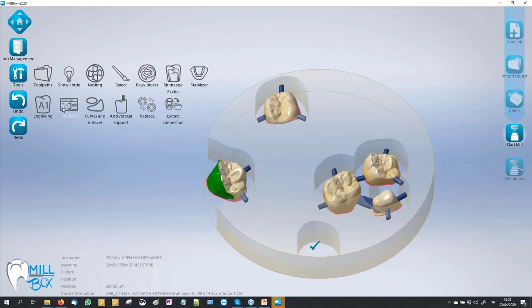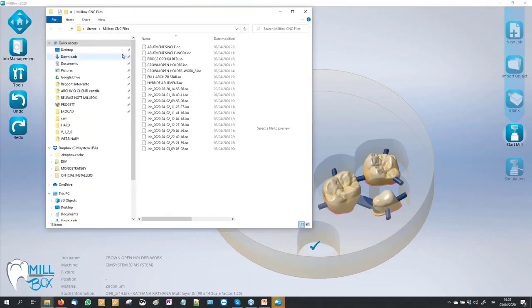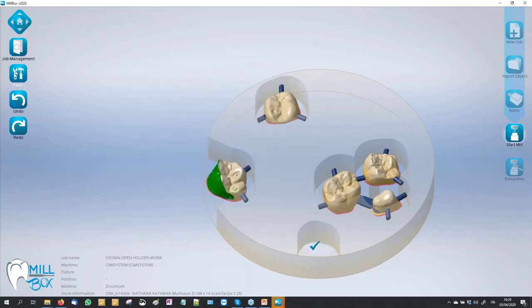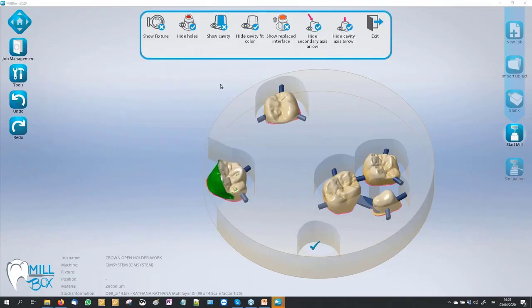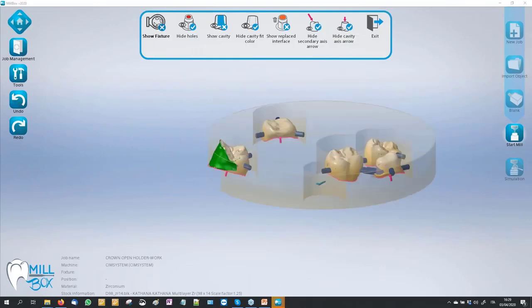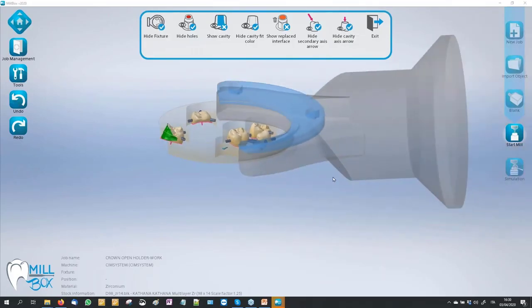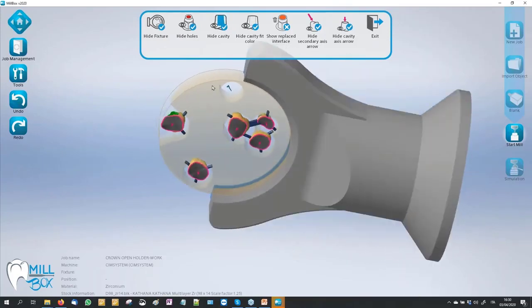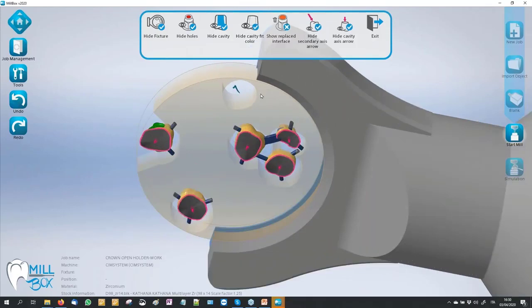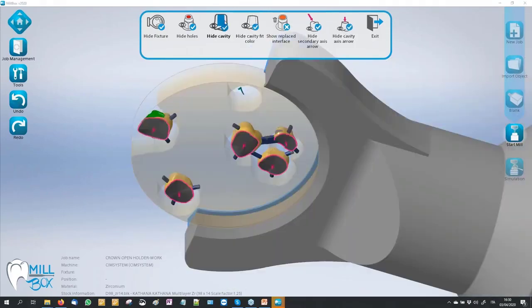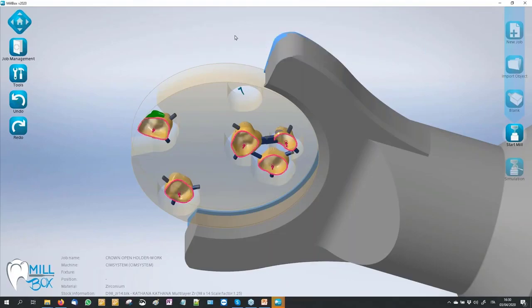Looking at all other icons quickly: there is the icon to open the CNC file to send to the machine. The next icon shows some features and shortcuts for the hide and show function, and also the cavity direction.